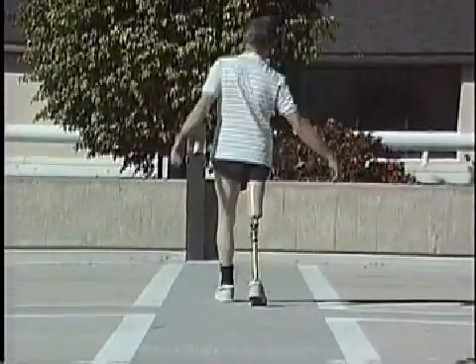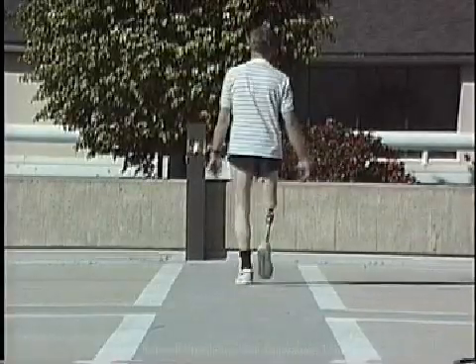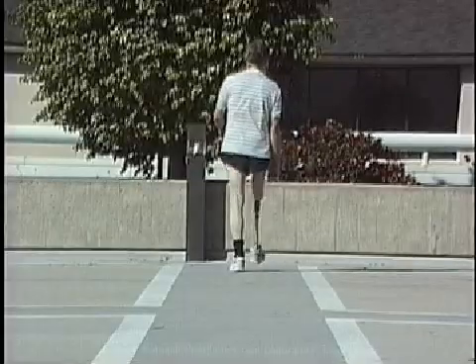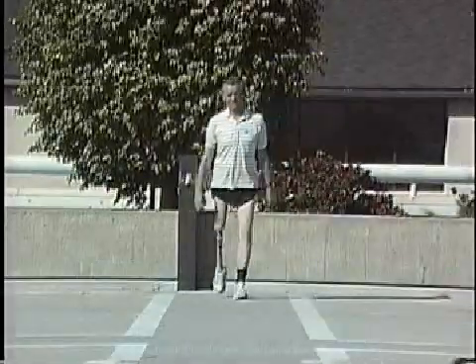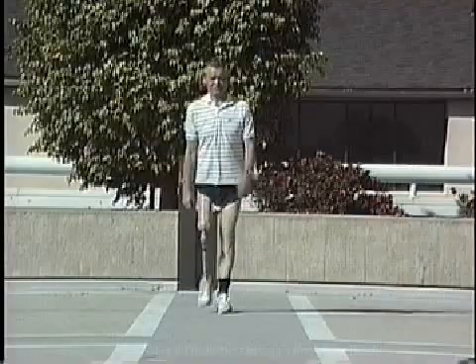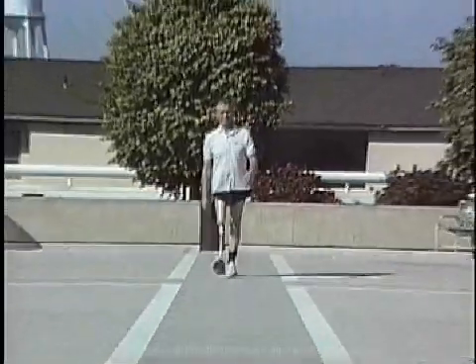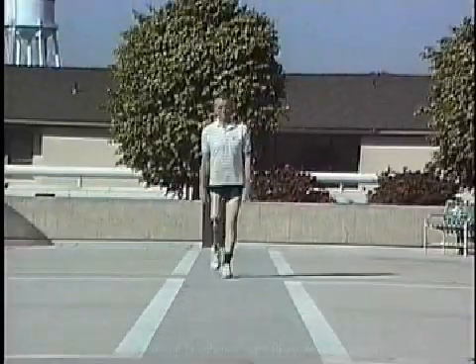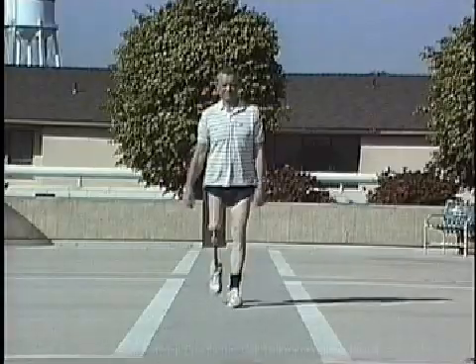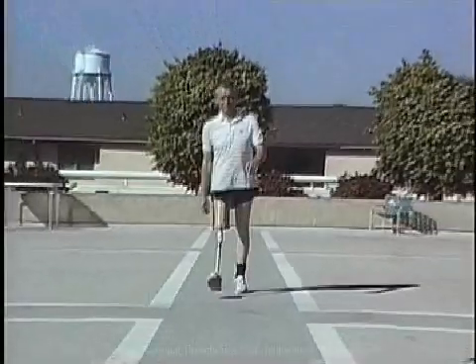Lateral trunk bending can occur when the prosthetic foot is excessively outset. In this case, the individual leans to place more of his body weight closer to the support point of the ischium, placing less demand on the gluteus medius in controlling the pelvis. At the same time, the compensation reduces pressure on the lateral distal femur.